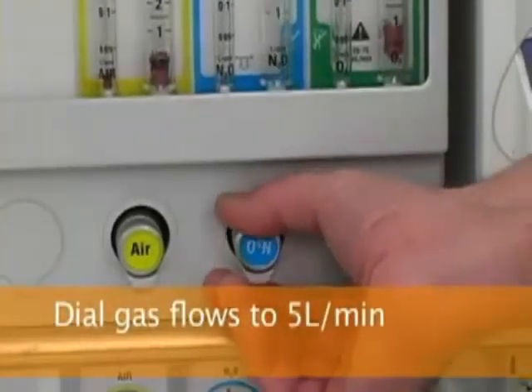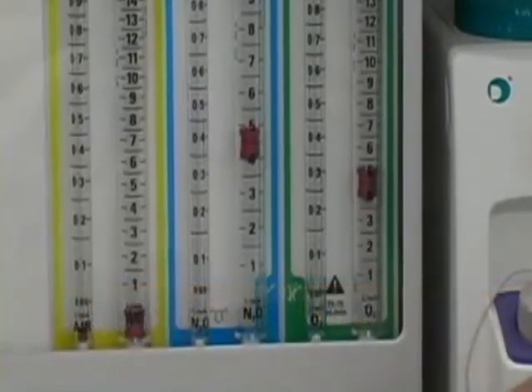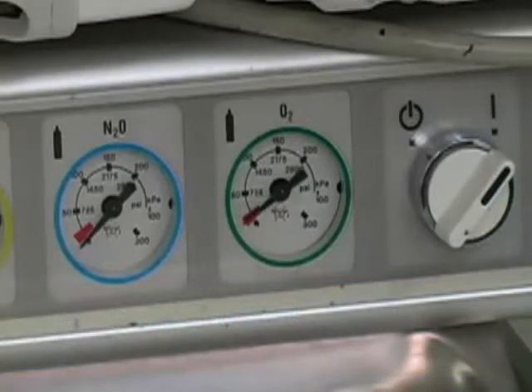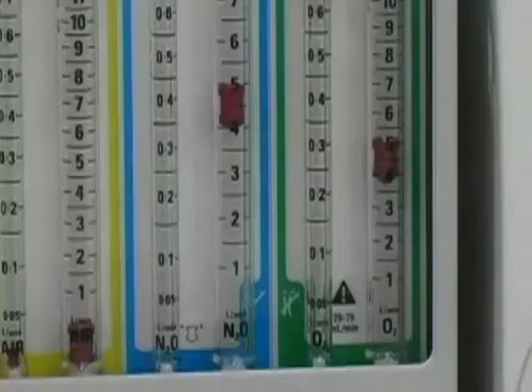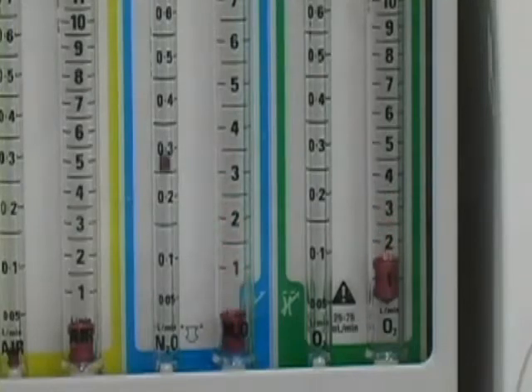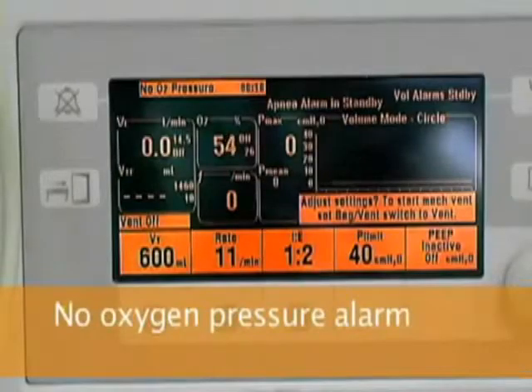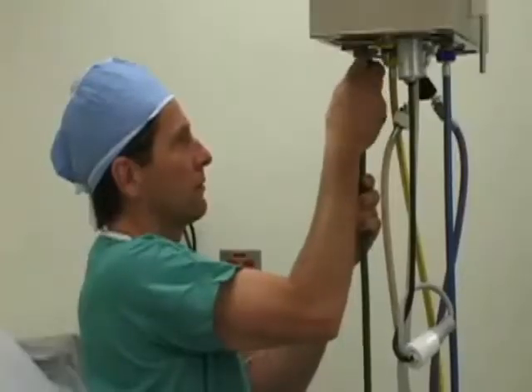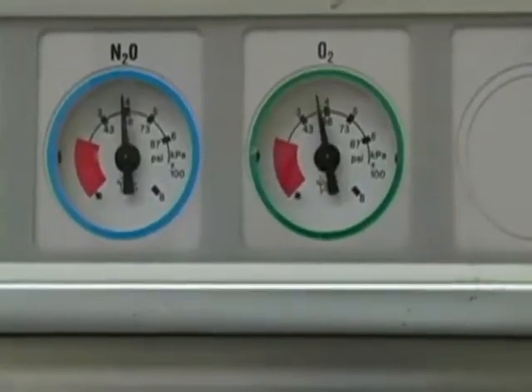Next, the fail-safe valve is tested by dialing nitrous oxide and oxygen gas flows to approximately 5 liters per minute. You need a nitrous oxide supply from either the central pipeline or a tank. Then the oxygen tank is closed. As the oxygen pressure falls, you should observe that nitrous oxide flow turns off before losing all oxygen flow. When the oxygen pressure falls to 0, you should hear and see the no oxygen pressure alarm. Then set all gas flows to minimum and reconnect the central oxygen pipeline supply. Verify that the pipeline pressure gauge reads about 50 psi.